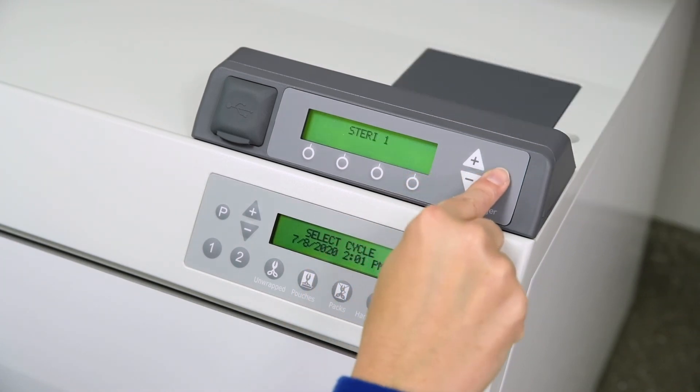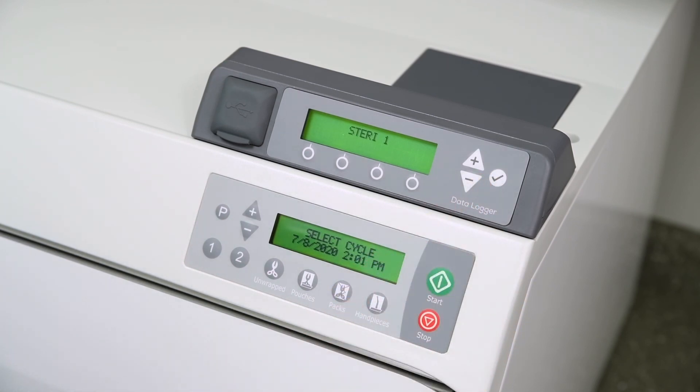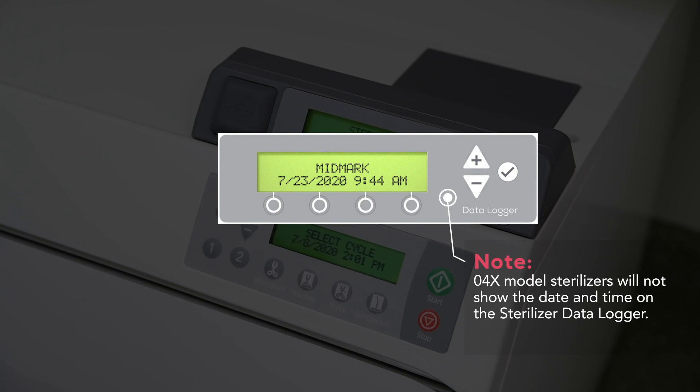The main menu will appear with either the sterilizer name, if one was entered, or the default name, Midmark, will appear.